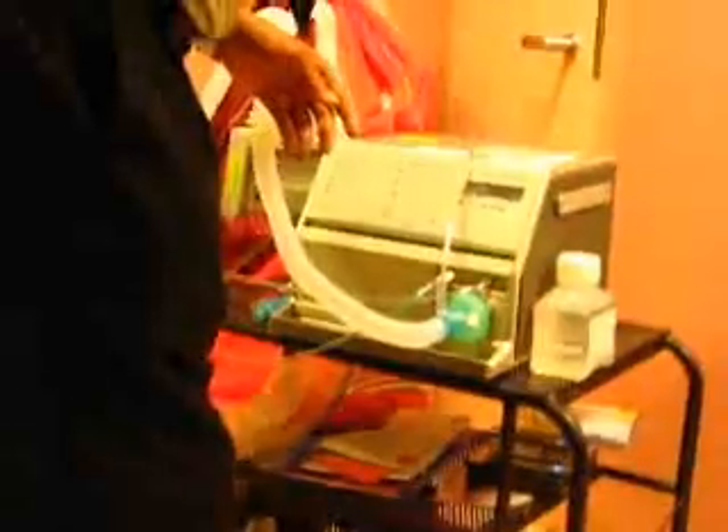You've got to plug it in the wall. Let me tell you a funny thing — I got a call the other day, a patient came home. You see this button here? It has to be in an on position, because in an off position, it only works by the external battery and the internal battery, and not the AC.